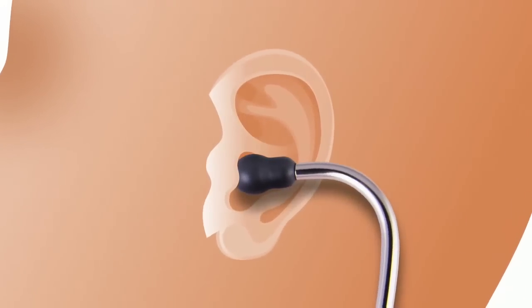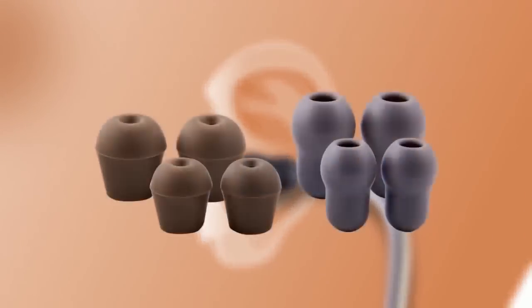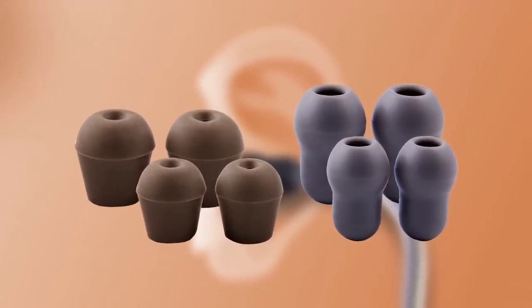When inserting the stethoscope ear tips into your ears, they should point forward. Littmann stethoscope ear tips come in both small and large sizes, as well as soft and hard, for an effective seal and comfortable fit.